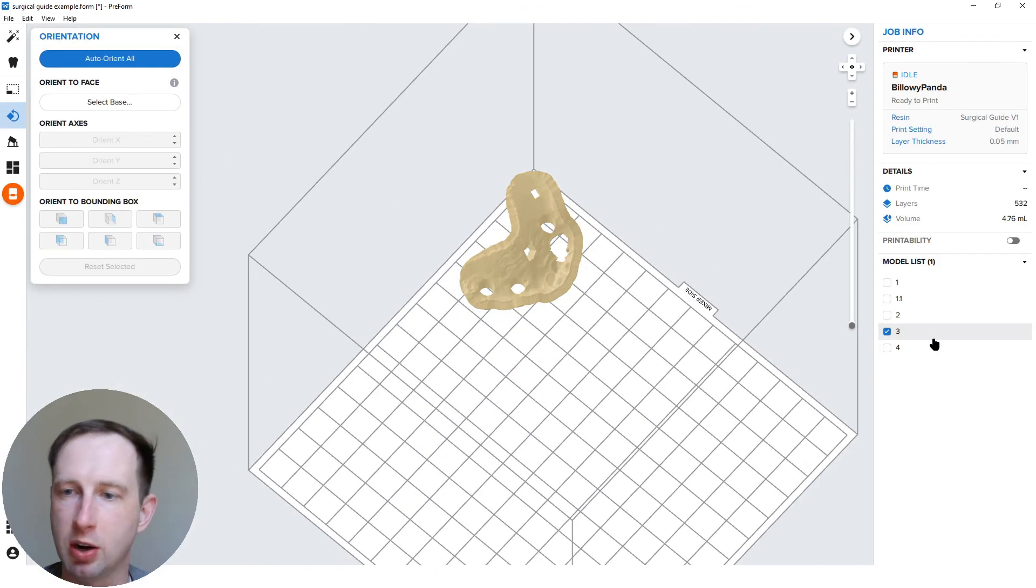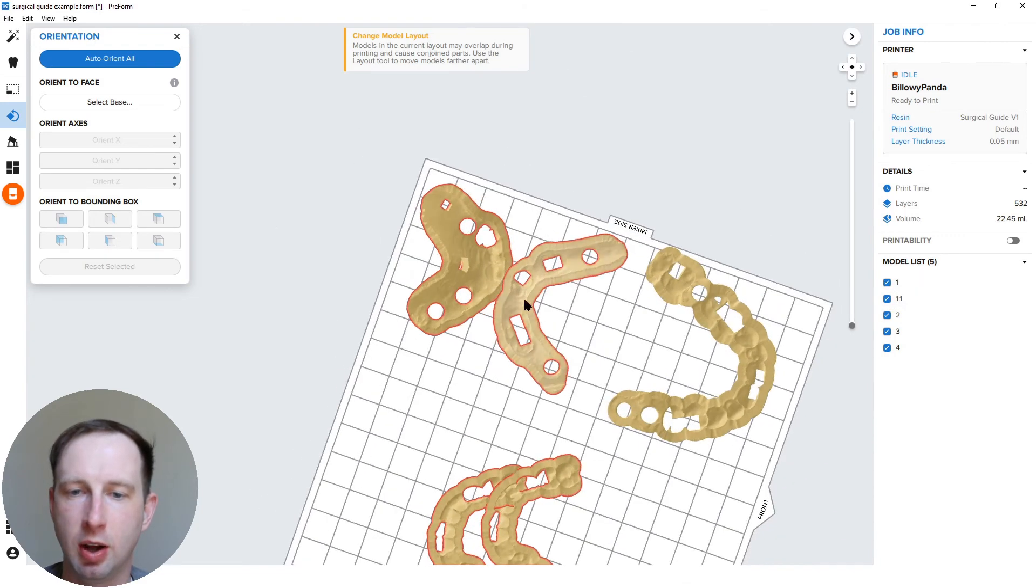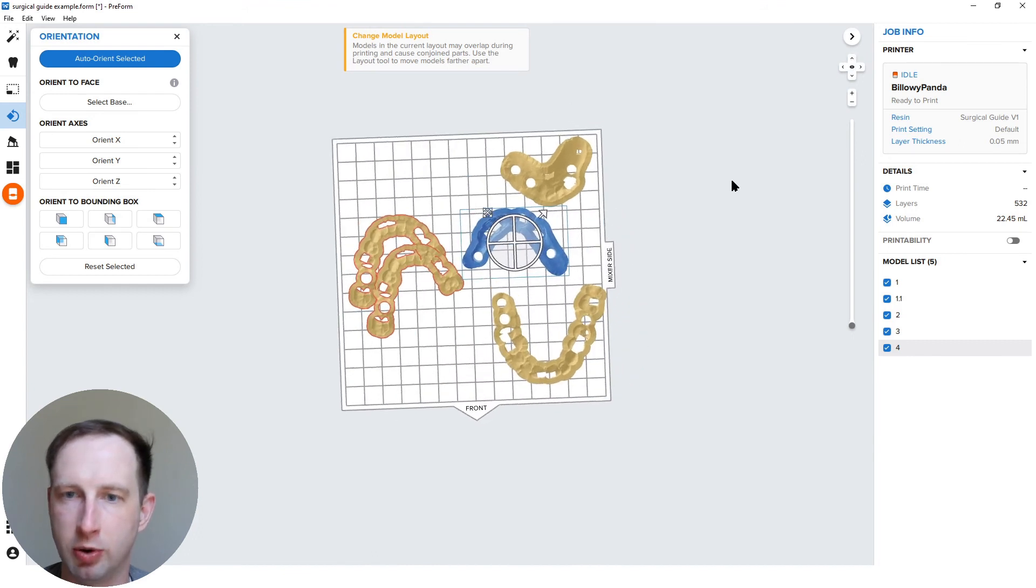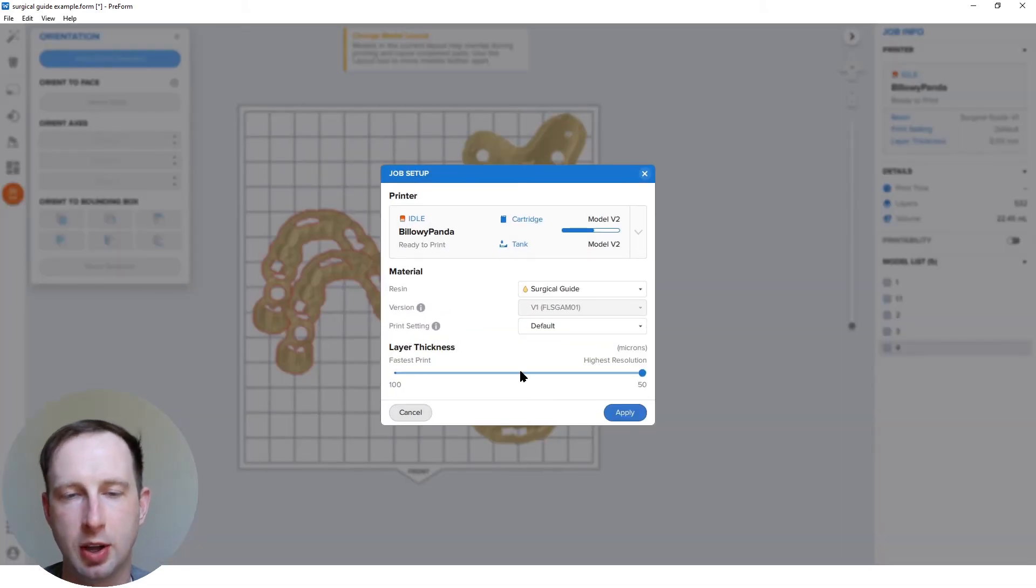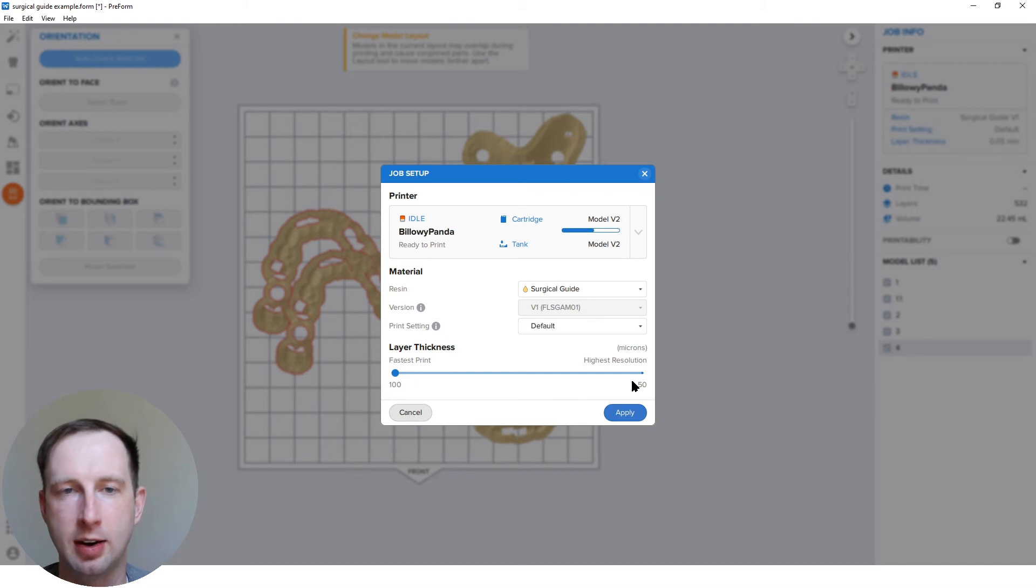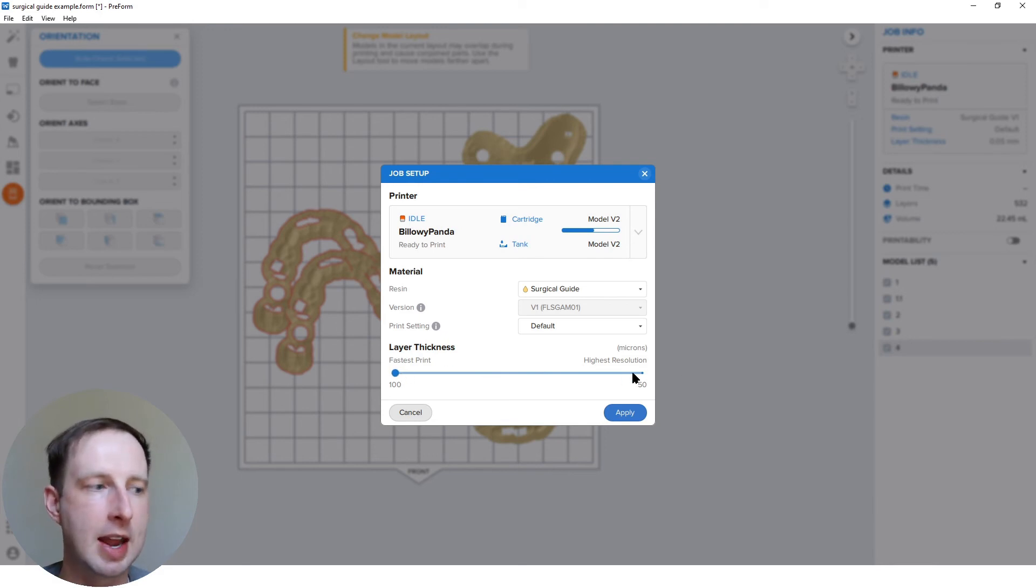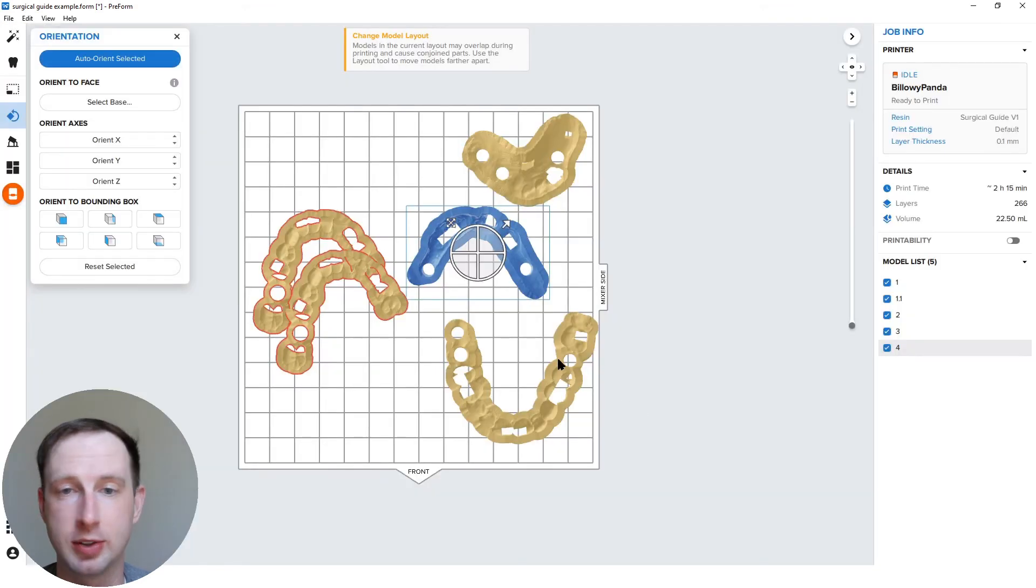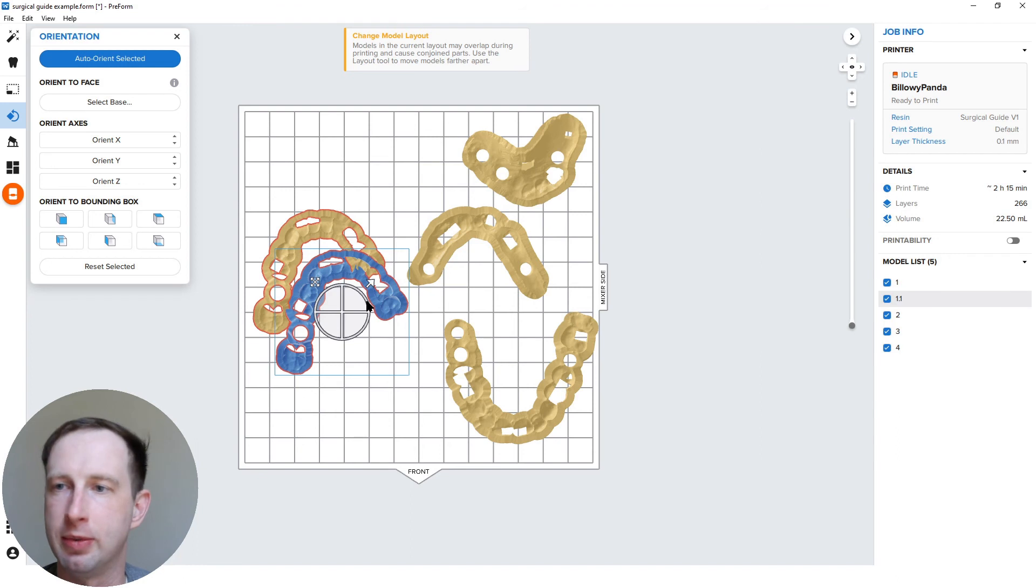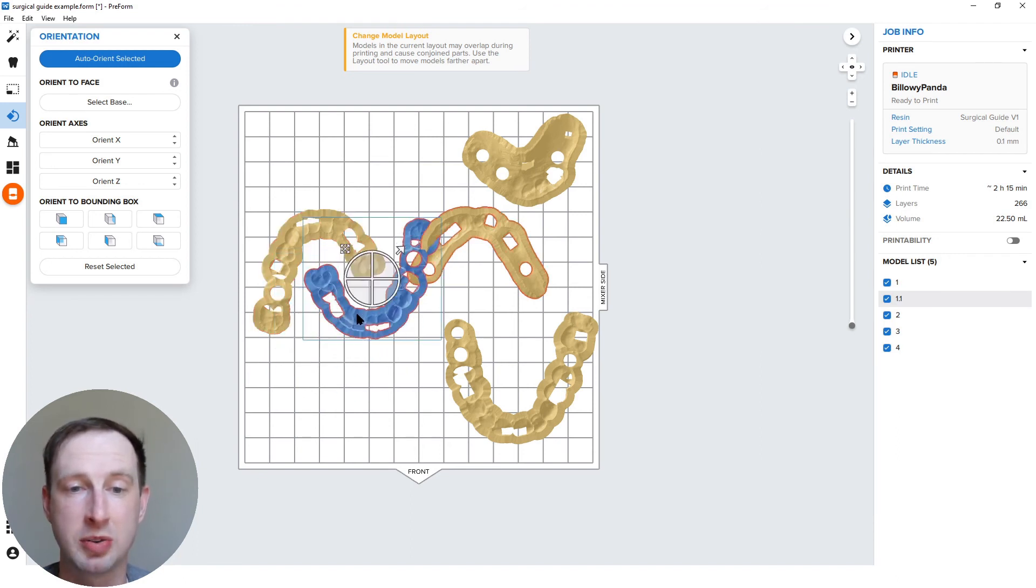Last thing I'd mentioned, and this is a pretty counterintuitive point. Actually two things. I want to show you how to set up the parts and position them so they're optimal from the get go. But before I do that, before I forget, it's a little bit counterintuitive, but I actually think with surgical guide, 100 micron settings better than 50. I have some accuracy system science behind it, but just in my opinion, if you're using 50 and you're getting any sort of less than desirable results and you're doing all the techniques that I'm saying, try 100. It's faster. I think it's better, honestly. So 100 microns is what I recommend. Certainly accurate enough for everything you're doing with surgical guides all day. Really very little difference in accuracy between the 50 and the 100 micron settings. So go with 100. I think they're better, better results.